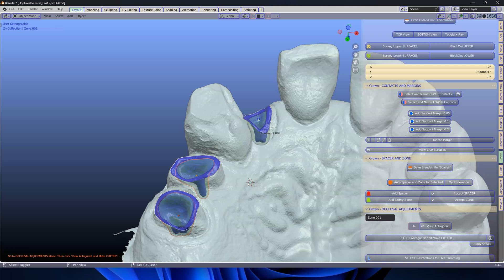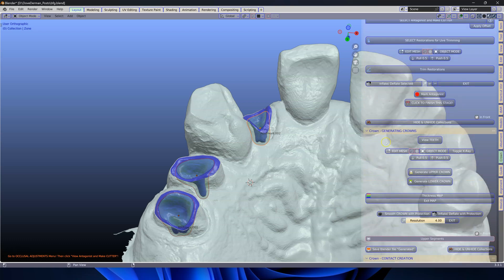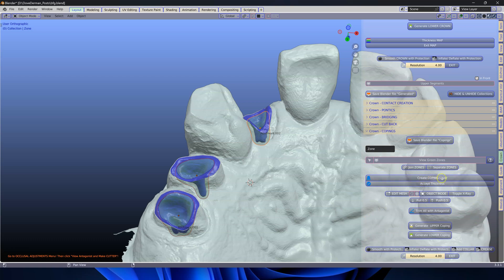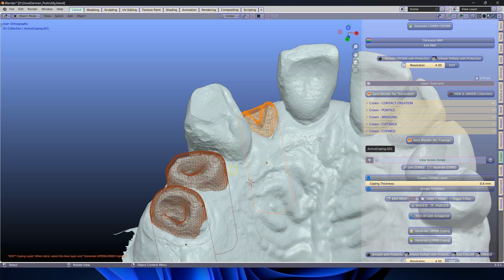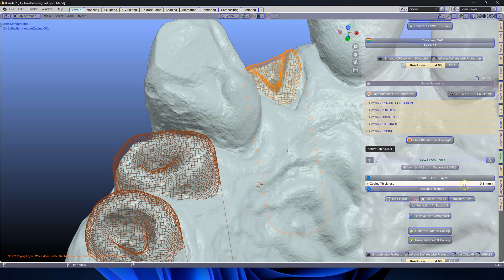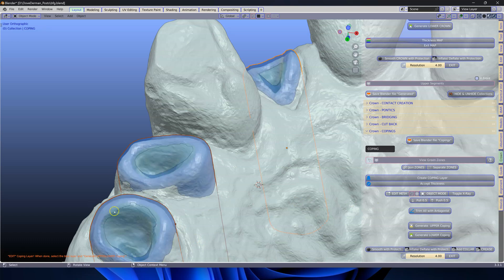Next we're going to select these zones because these are the starting objects to make our copings. Click here to create coping layer. Because we don't need such a big layer going all the way around it, we're going to make this way less. Let's make that 0.3. I'm going to do the same for the other two — 0.3 and this one as well. Then we're going to accept the thicknesses for all three of these.